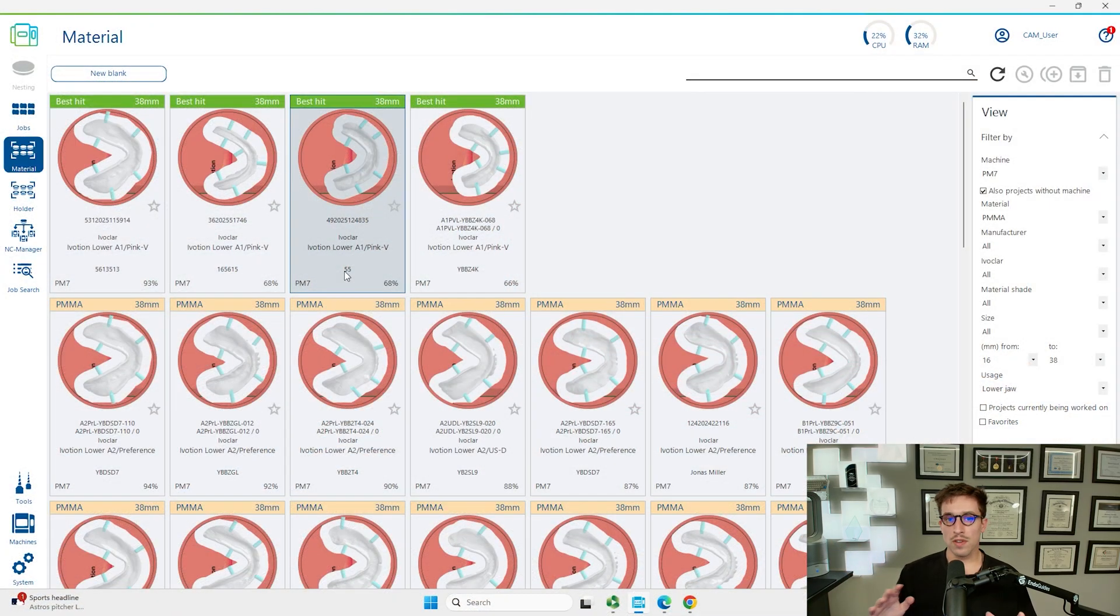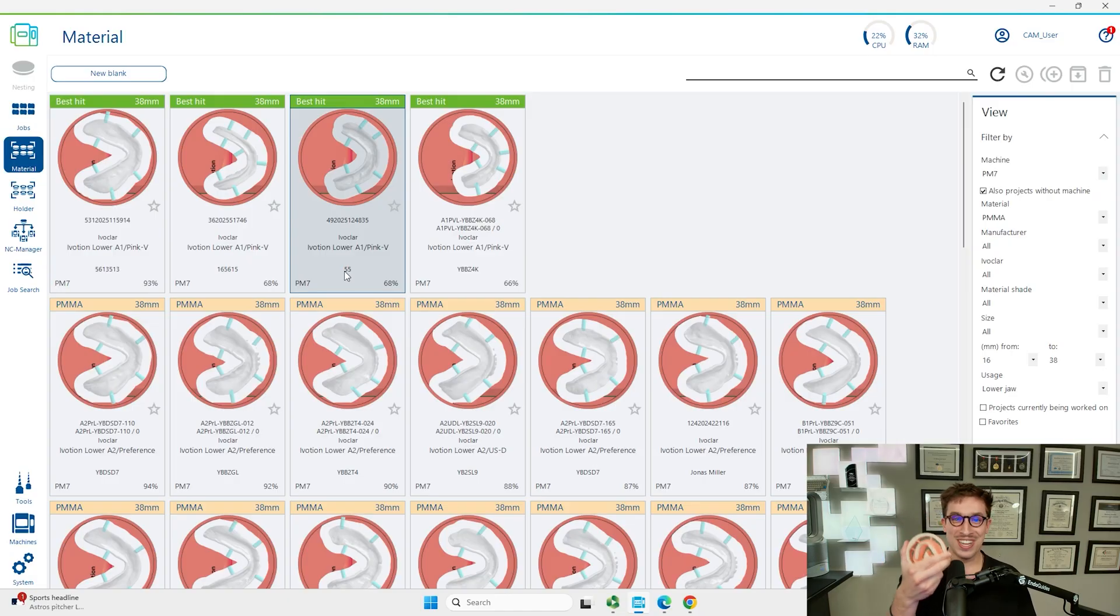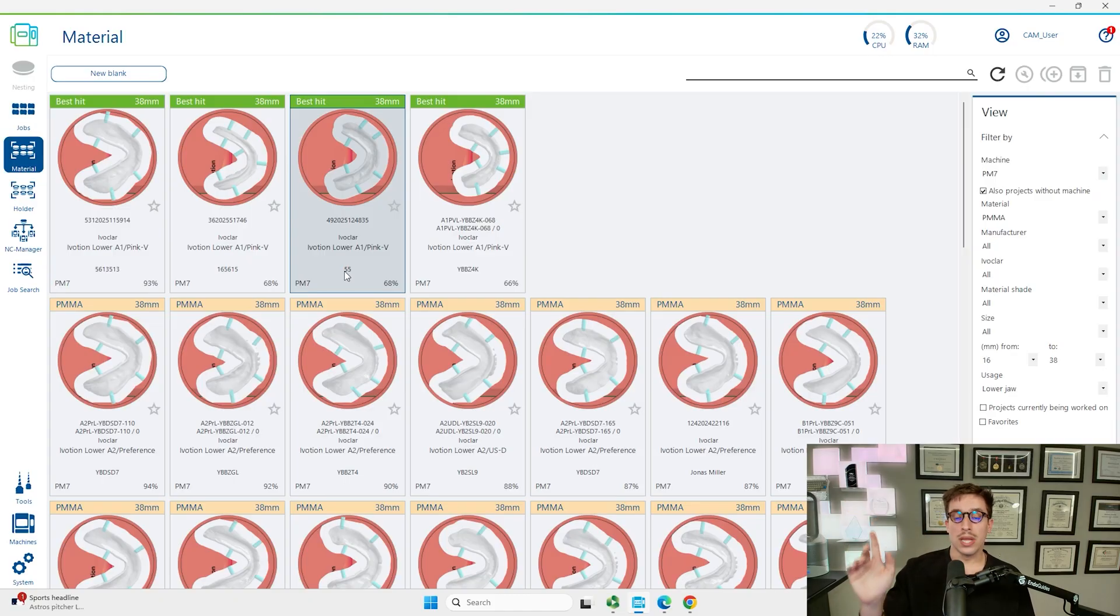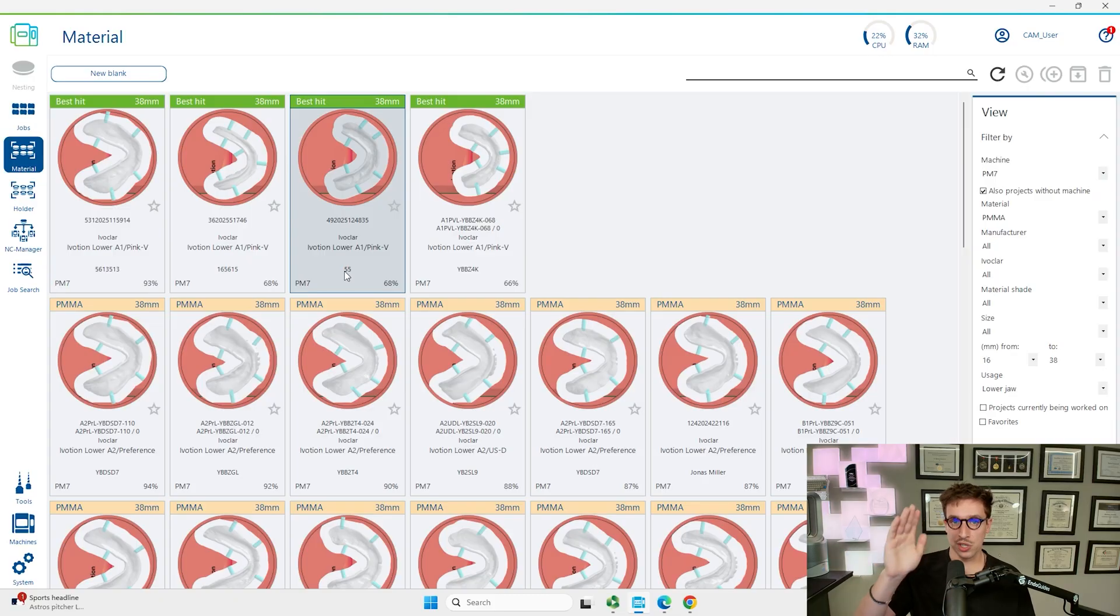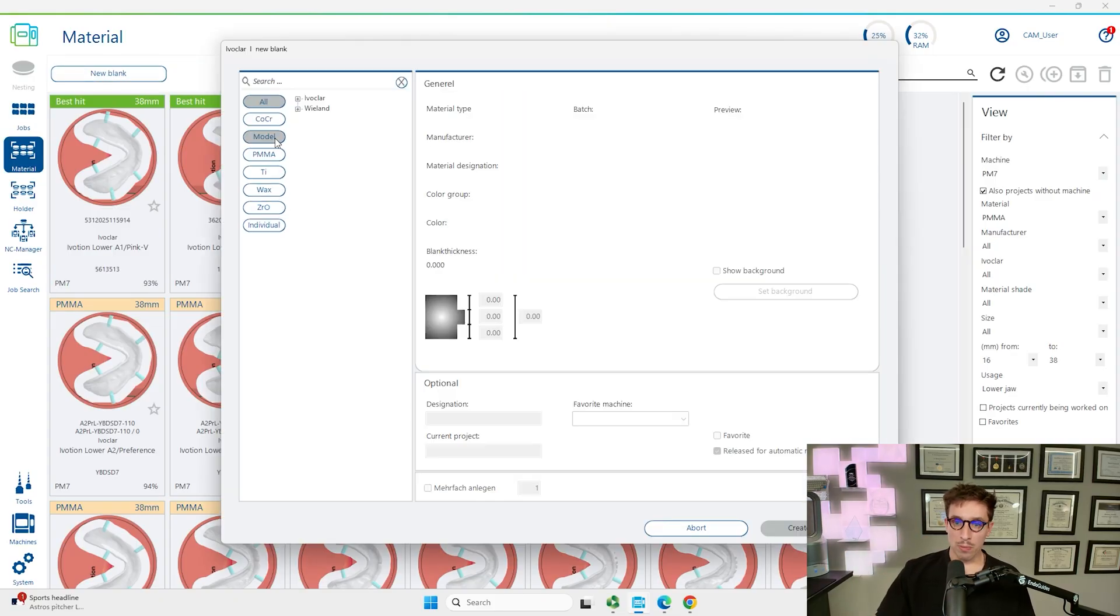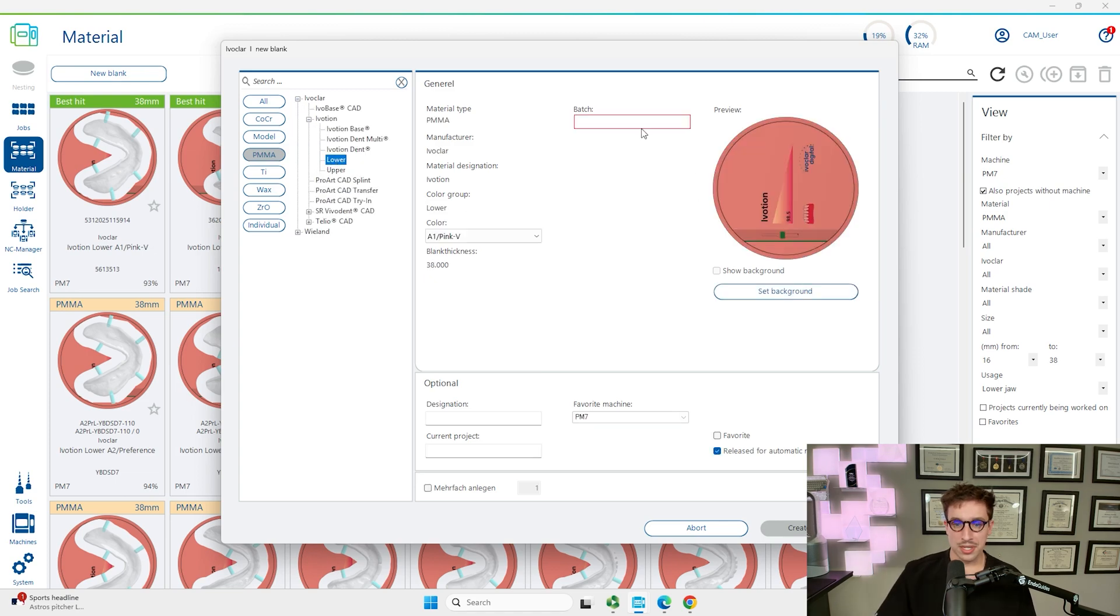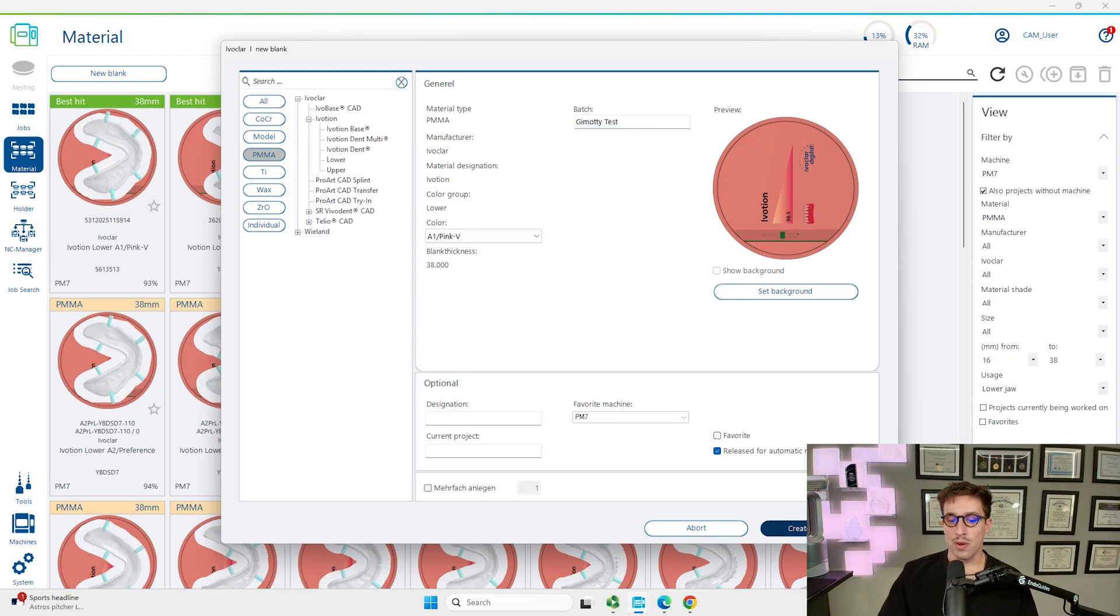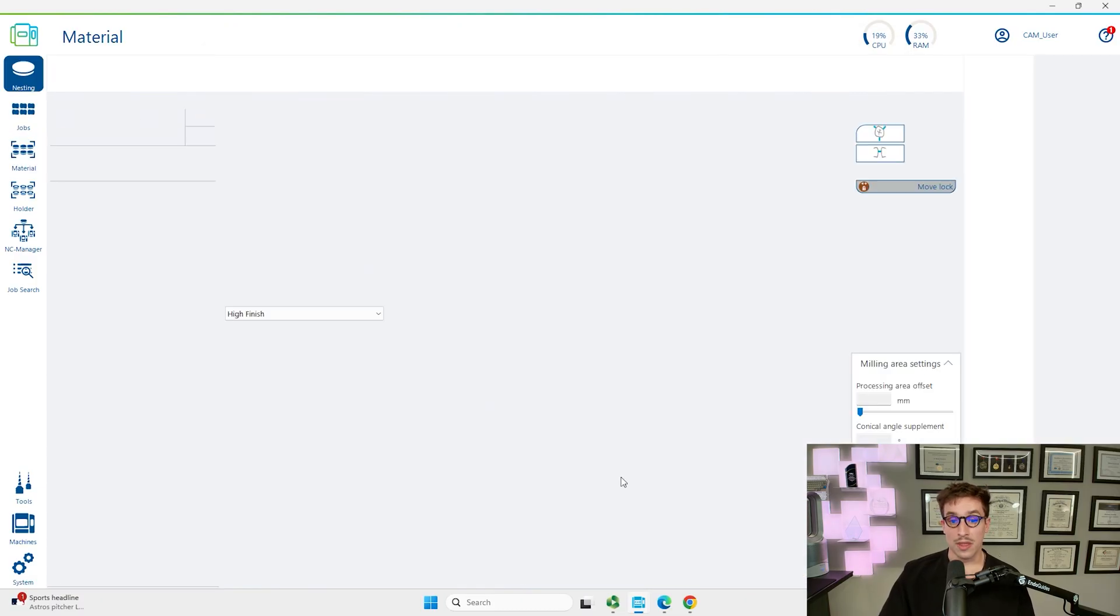Think of your blank as your unused puck. There's little RFID tags on the bottom that you can scan to link your job to your printer. We're going to be making a new blank and then we're going to tag this and attach it to the RFID container. We made a new blank, doesn't matter the shade at all because the material properties are the same. It's going to automatically nest it within the puck.